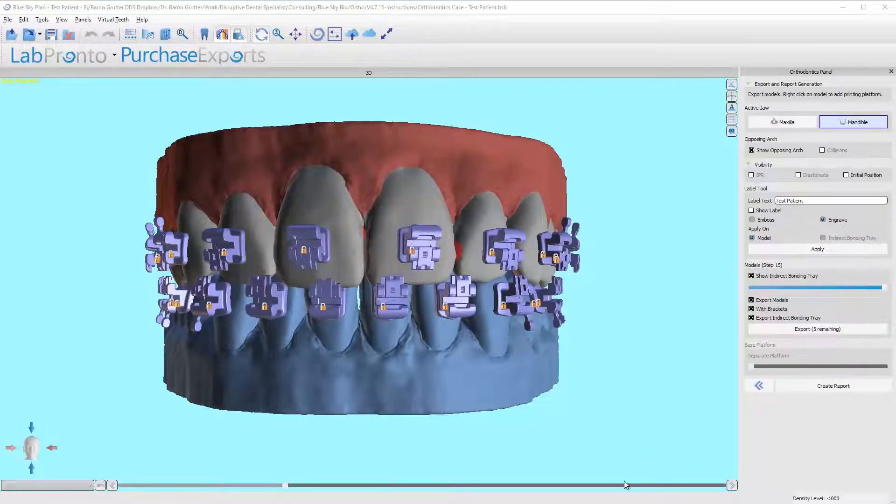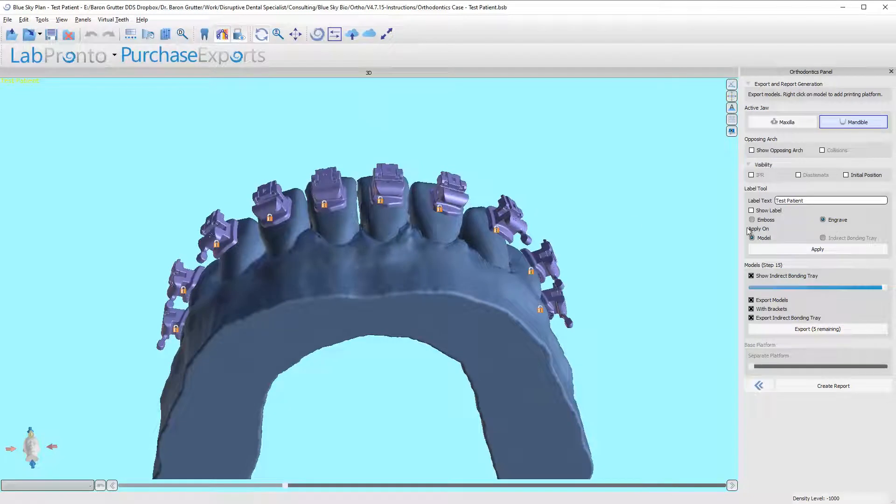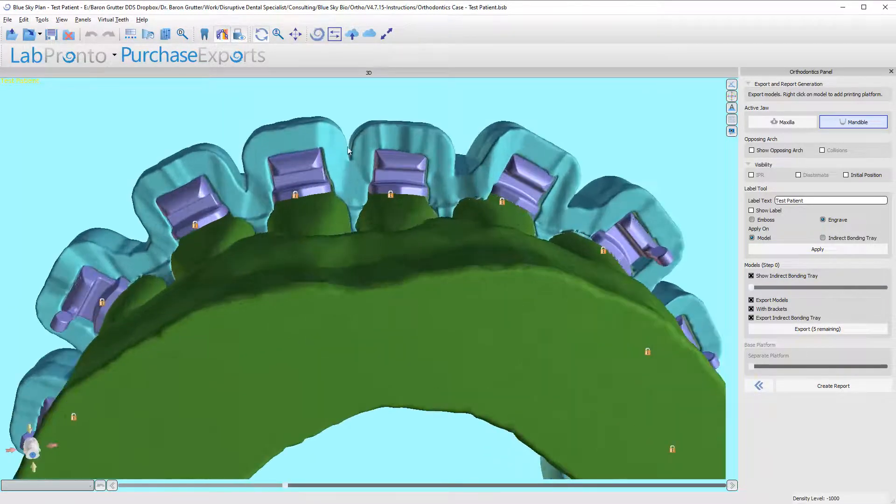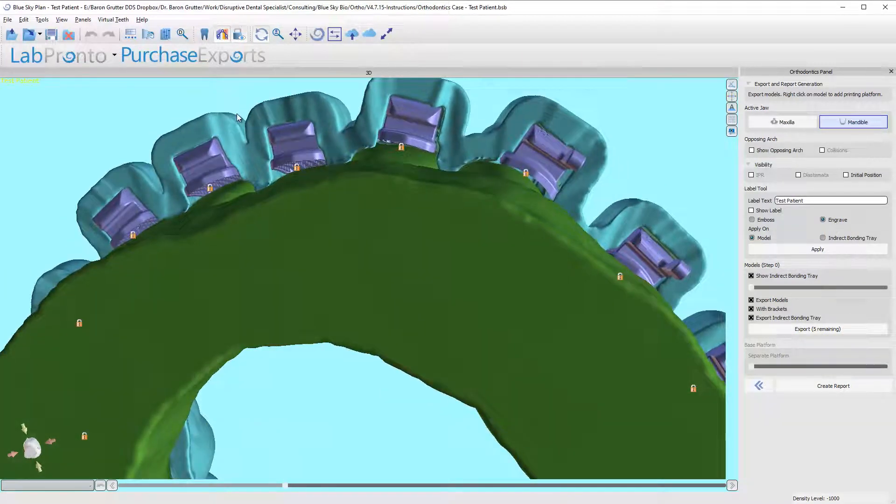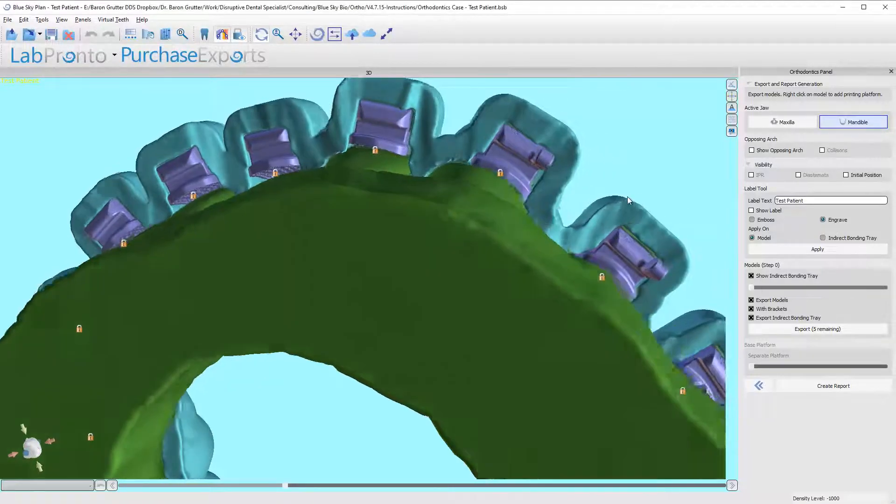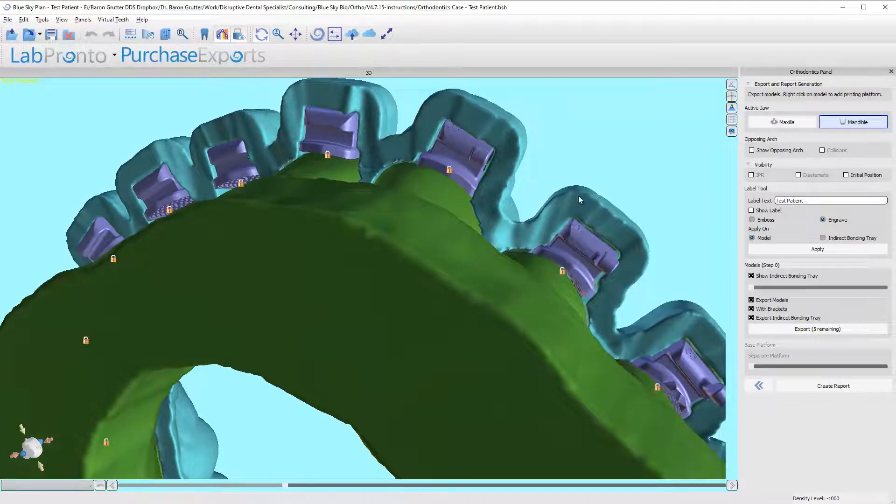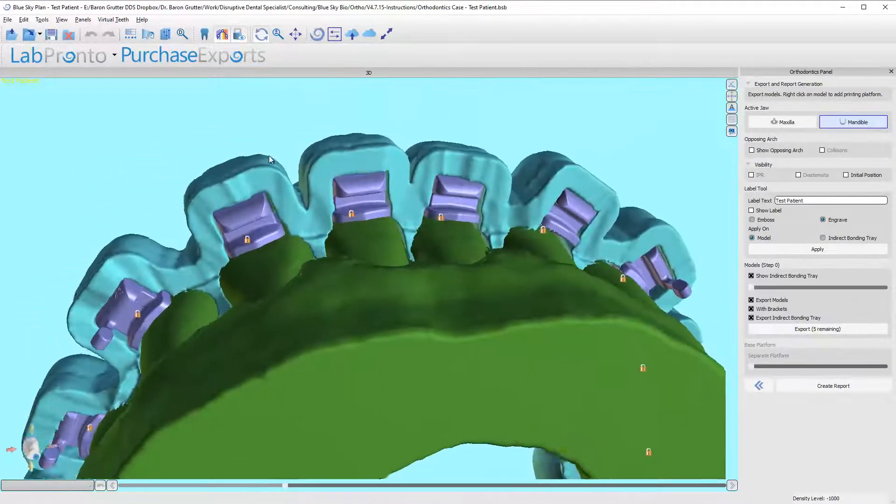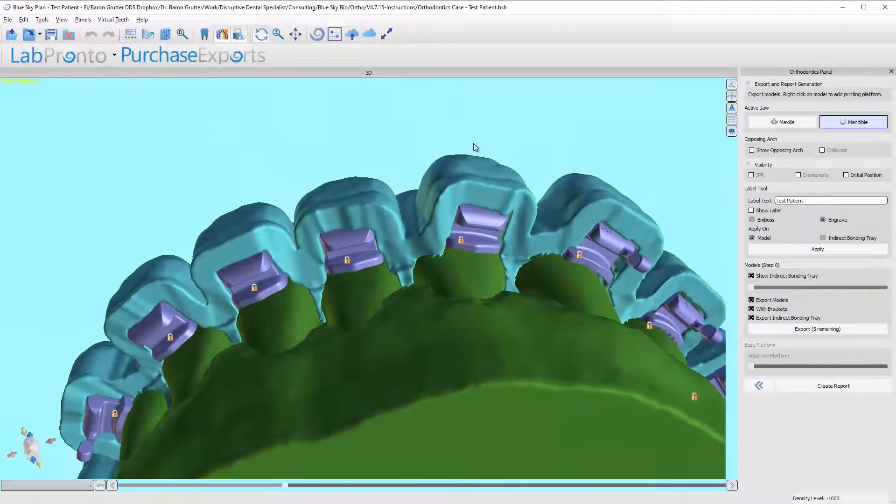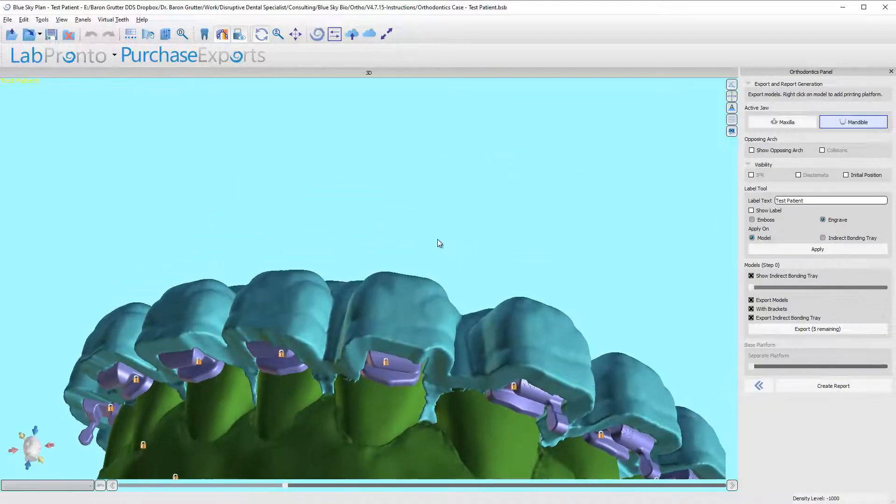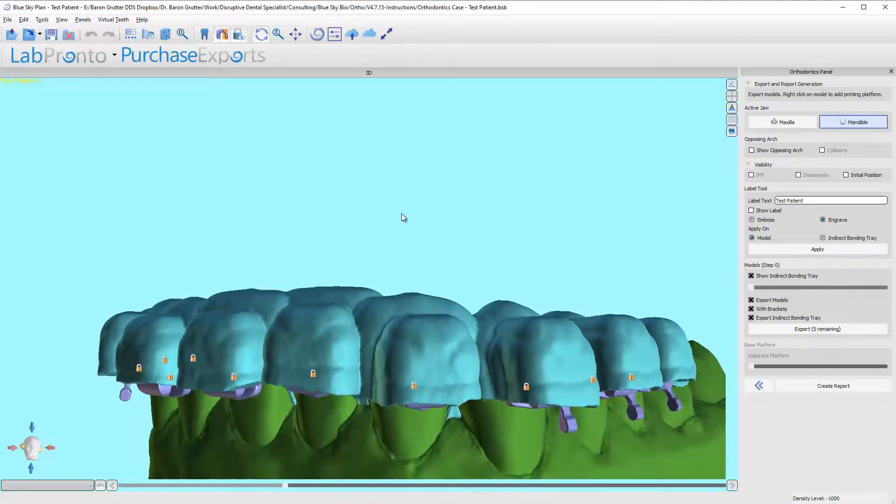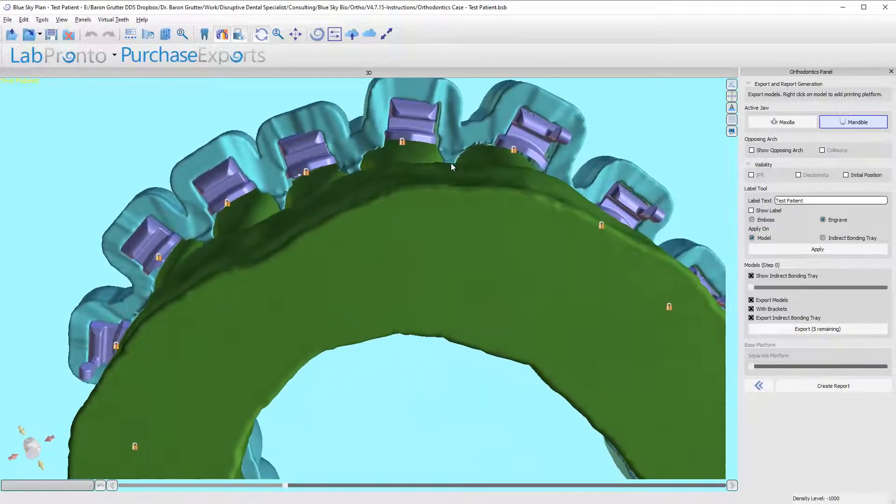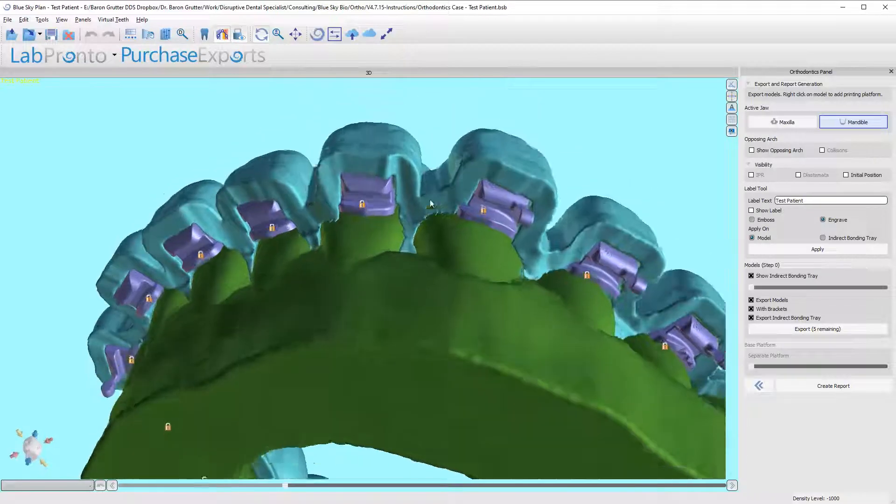Okay, so we're back now. Let's take a look at how this tray looks now. And now you can see that the tray is much more intimate. Sorry for that quick phone call. But anyway, as you can see it's much more intimate now. The undercuts are still removed so you can still get the tray on and off, but it will really grip on it. We're printing with a very flexible material that will give you pretty good grip of these trays for these brackets.